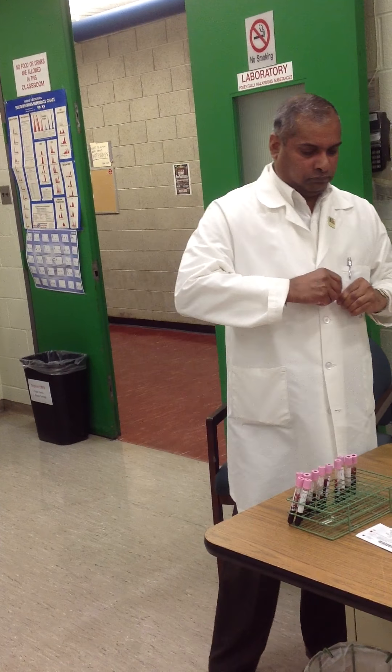Once you have centrifuged, what do you do next? By the meantime it's centrifuging, you're not wasting time. You prepare the test tubes. Before all of that, you check for the patient's information — to see when they have had a transfusion and what you have to look for, if there's anything on the patient's records. You're going to do the patient's history.